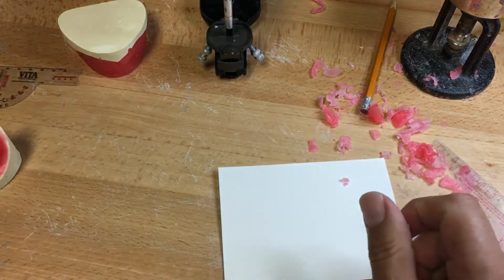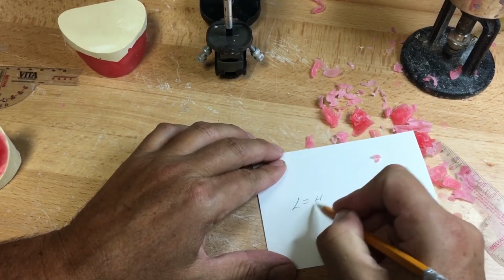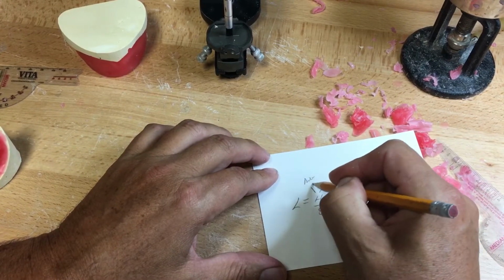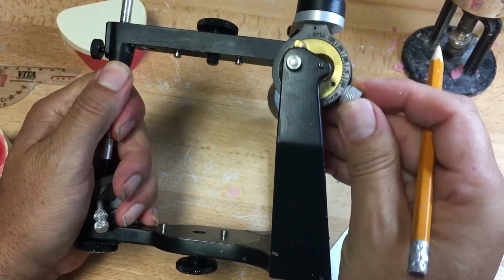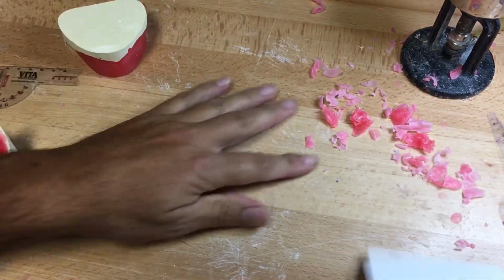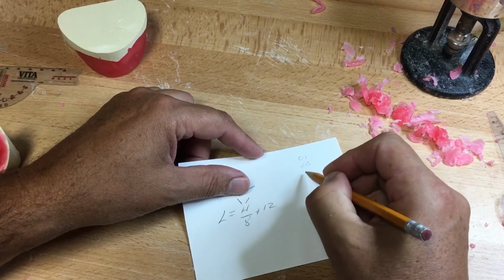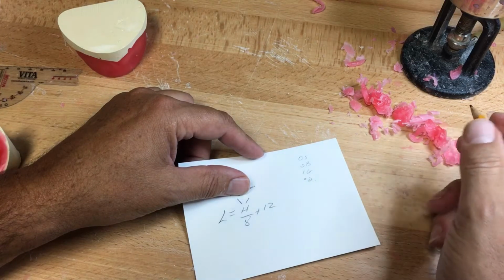The Bennett shift is L equals H over 8 plus 12. L is lateral shift, the Bennett shift. H is the average of the condyles, the condylar angle. We need to program our articulators to find out the condyles. The first few cases I will give you a condylar guidance, so therefore you'll be able to establish the correct overjet, overbite, incisal guidance, degree of the teeth.